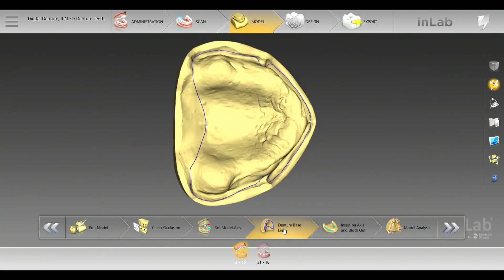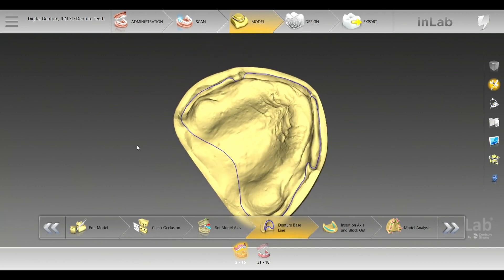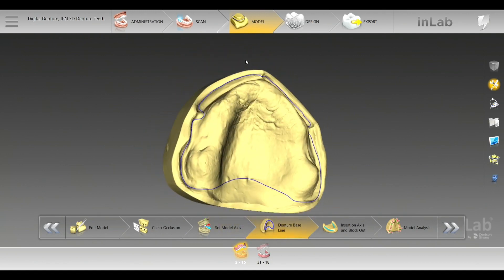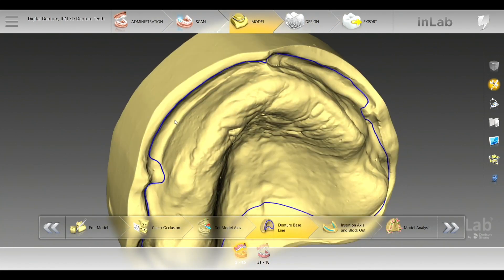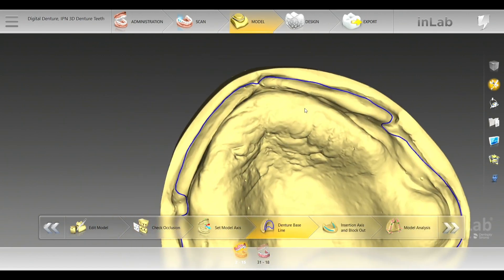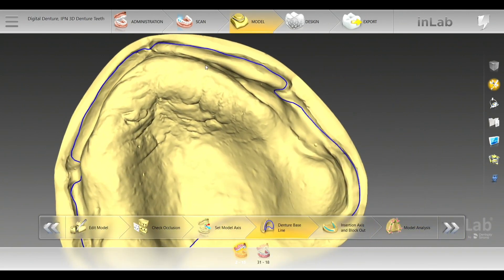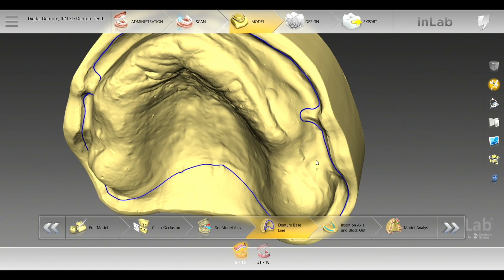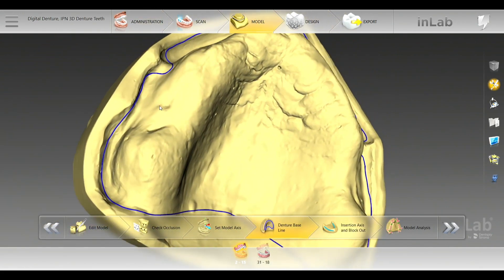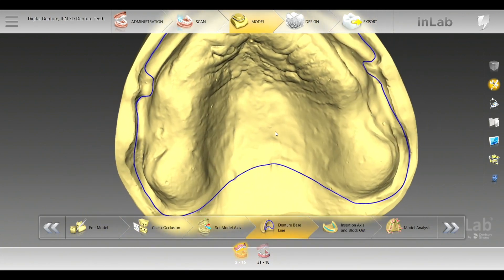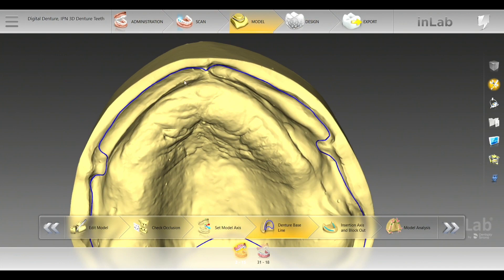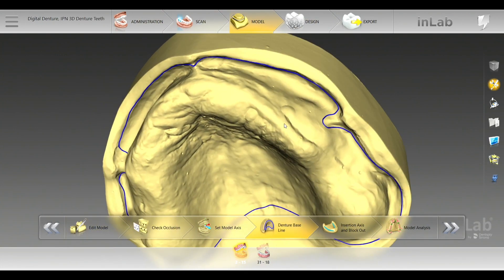Here in denture baseline, you're going to be drawing out the depth of how far you want the denture — so in your vestibule, you can cut it a little short. I tend to draw mine farther out. We tend to make the models nice and smooth on the borders so you can really see exactly the deepest part of the vestibule area. You double-click to start, click click click, draw your line, and double-click to end your line. You can always edit the base as well.